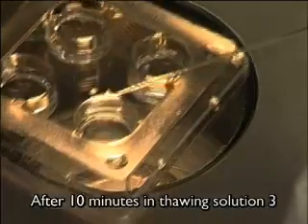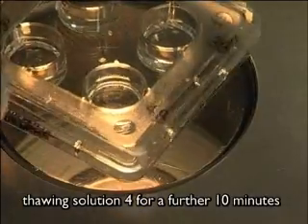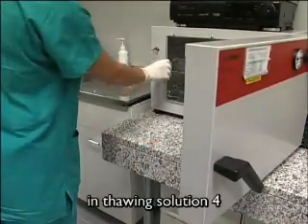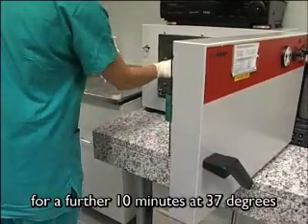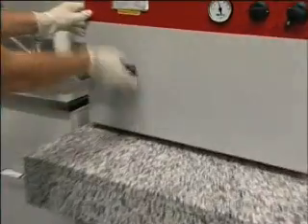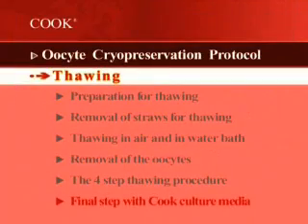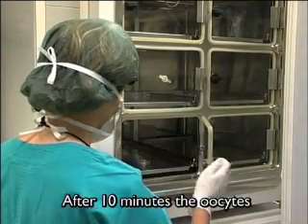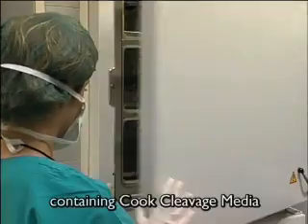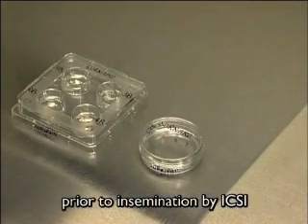After 10 minutes in thawing solution 3, the oocytes are transferred to thawing solution 4 for a further 10 minutes. Finally, the oocytes are further incubated in thawing solution 4 for a further 10 minutes at 37 degrees in a non-CO2 incubator. After 10 minutes, the oocytes are removed from solution 4 and transferred into the pre-equilibrated dish containing culture media in a CO2 incubator for 60 minutes prior to insemination by ICSI.